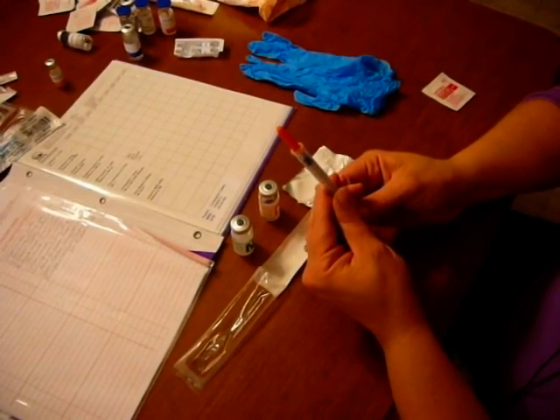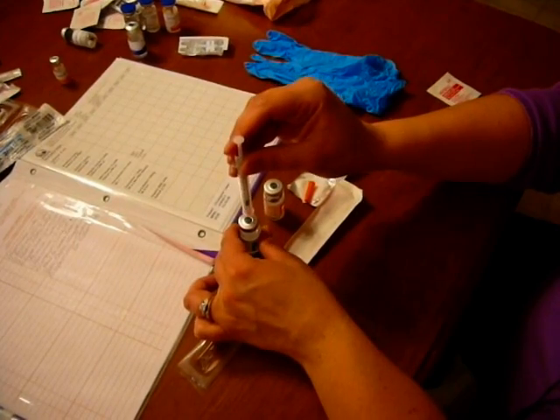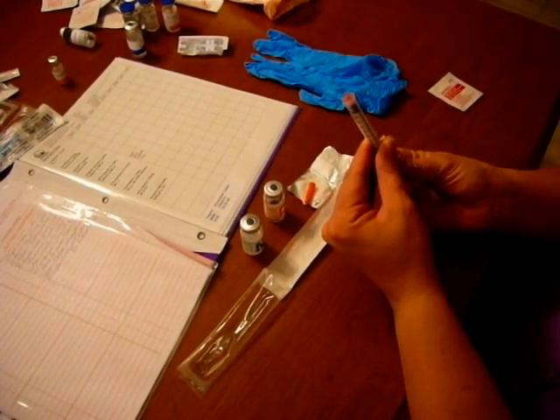I need to put 18 units of air into the NPH, so I draw up 18 units. I take off my needle cover, put it on the sterile field, and put 18 units in. Next, I need to put 6 units of air into the regular, so I do that.